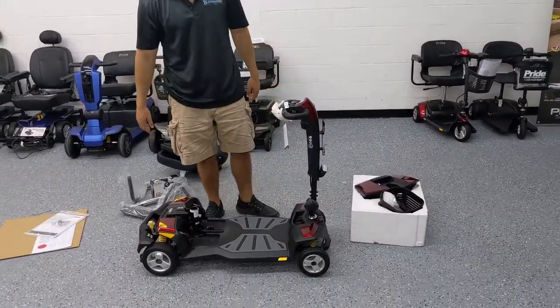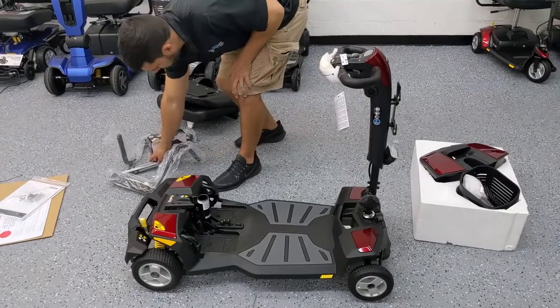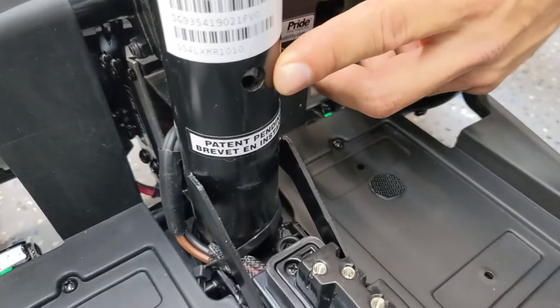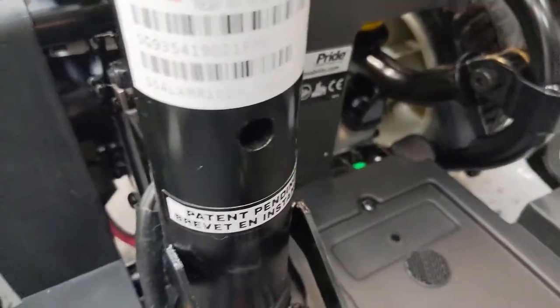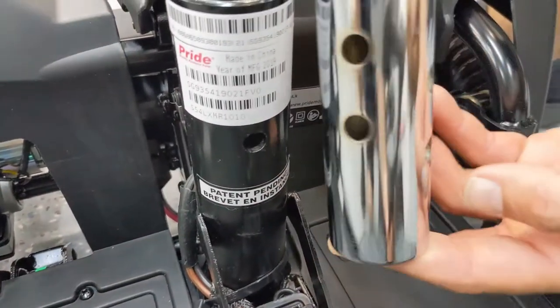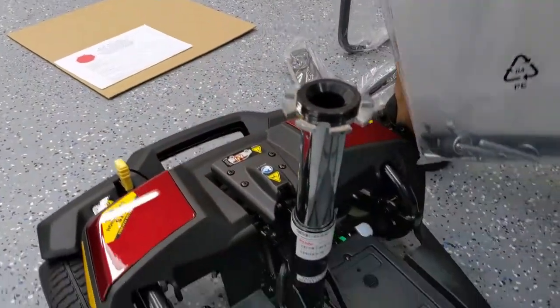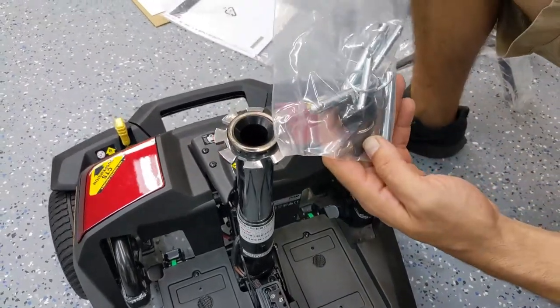We've made some room and we're going to continue with the setup. At this point, I want to go ahead and start putting the seat post on because we can't get the seat on without this post. This post is going to slide in here, and one of the post pins will go in this hole all the way through. You have several options for height. In the user manual bag, we have the pins and the keys found in a separate bag.